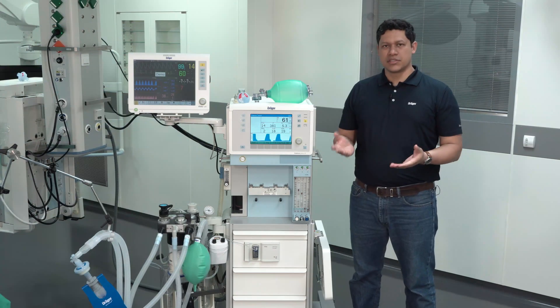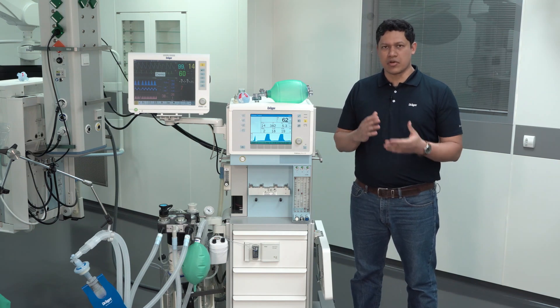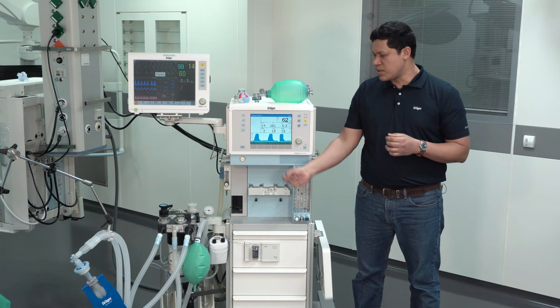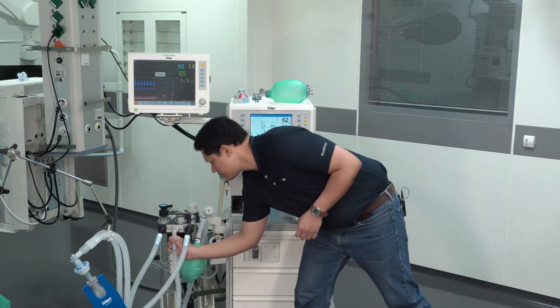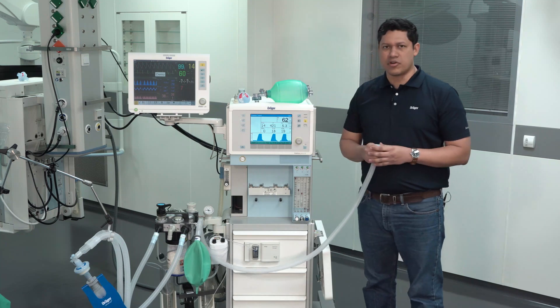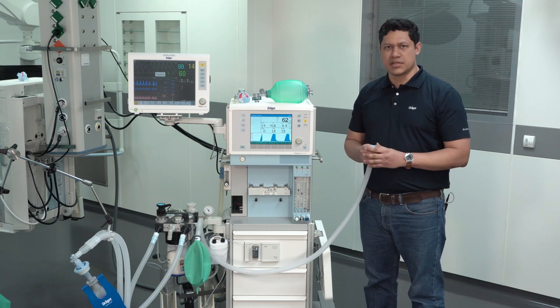In the case of a deficit of fresh gas flow, you have to act immediately. Either you have to identify incorrect leakages or you have to increase the fresh gas flow. Additionally, you can take out the manual breathing bag and allow the system to take ambient air into it. Keep in mind that in this situation, you will have an inspired fraction of oxygen between the set fraction of oxygen in the fresh gas flow and 21% from the ambient air.